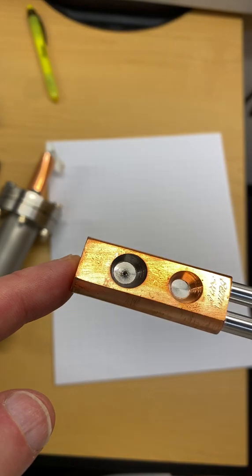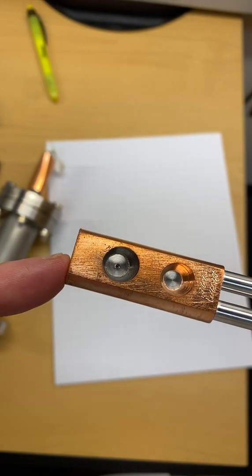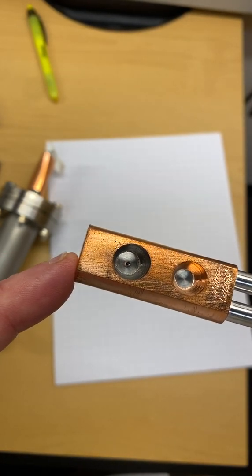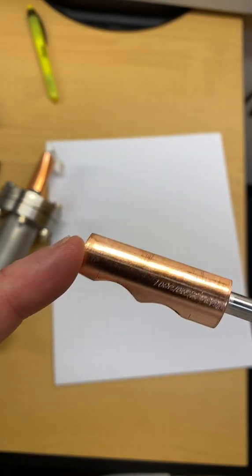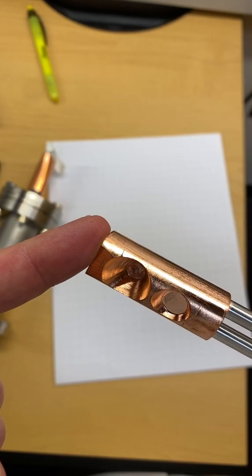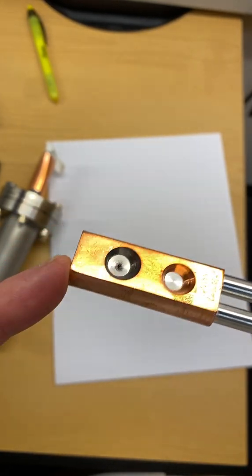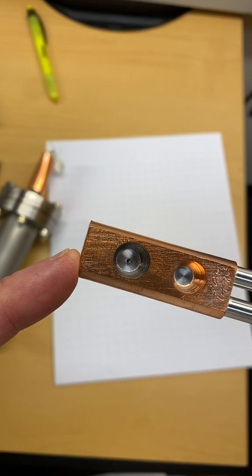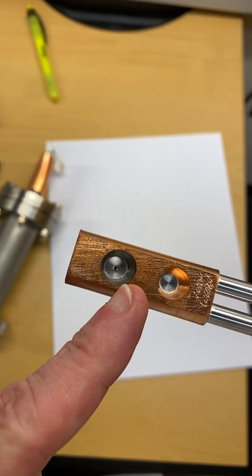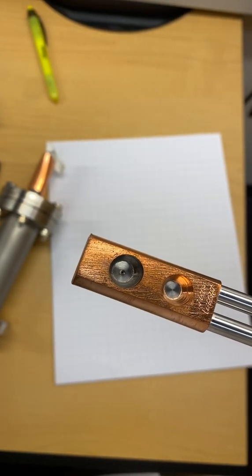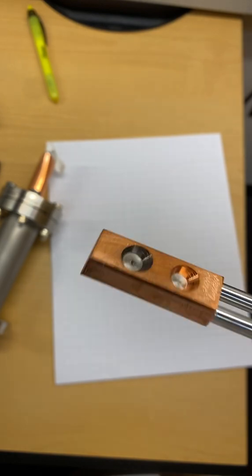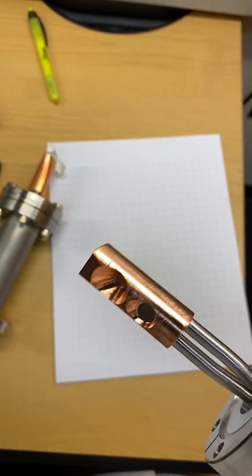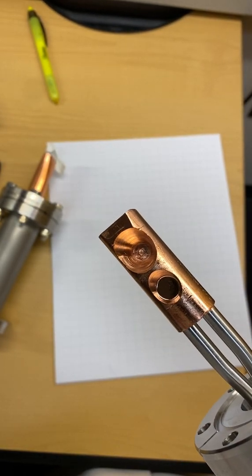And the reason why is because this looks like a copper target. You want the 6 MV side to be just thick enough to stop the 6 MeV electron beam coming in and hitting this target, and not any thicker than it needs to be to stop that beam and also produce adequate cooling.